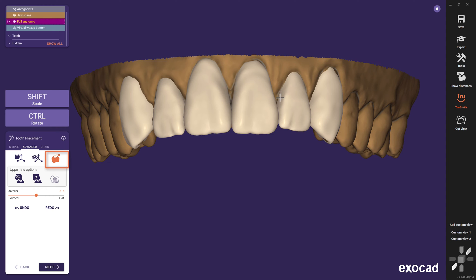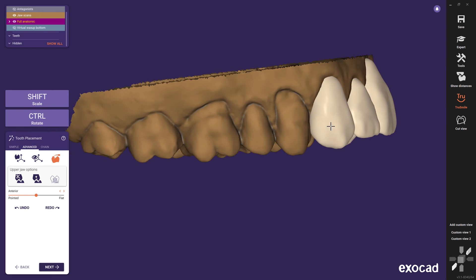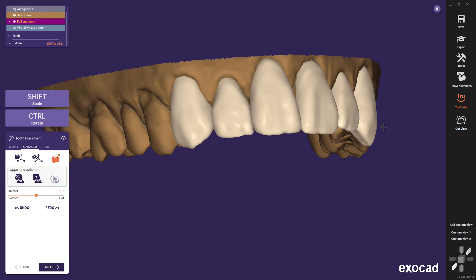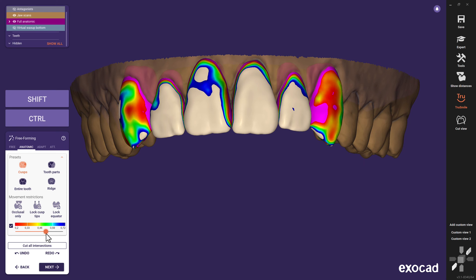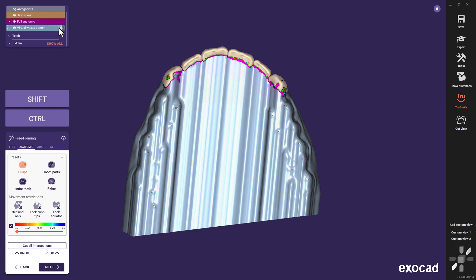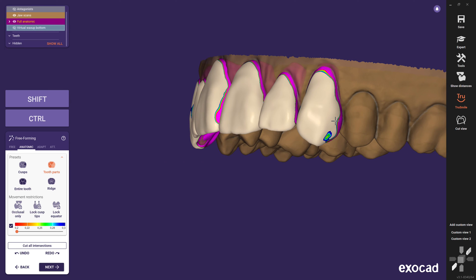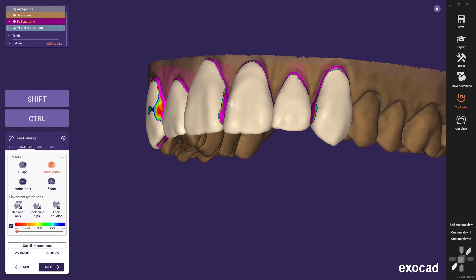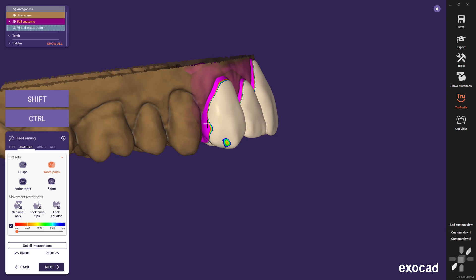To do this, we select the Instant Anatomic Free-Form tool. But keep in mind, there is one thing we can't know right now — the thickness of our design. You will see that especially on the canines after clicking on Next. We implemented a color indicator to visualize if the desired mockup thickness has been realized. Remember, you defined 0.2 mm at the beginning. Because we used an insertion direction ideal for a vestibular clip-on, everything below 0.2 mm and what we can't reach palatally will be displayed pink. This is how we know exactly where we should add material to strengthen the thin mockup, or where we are free to make changes without concerns.